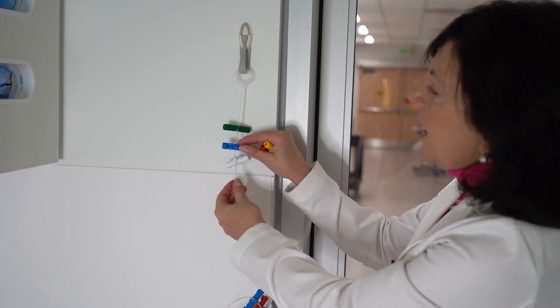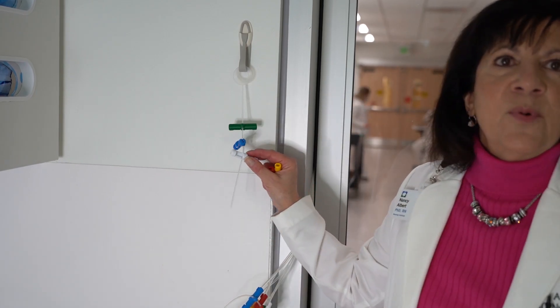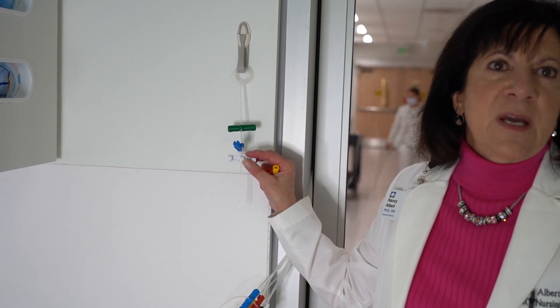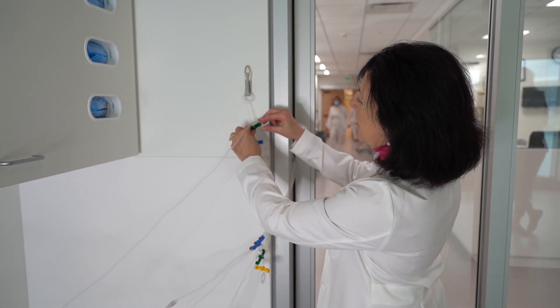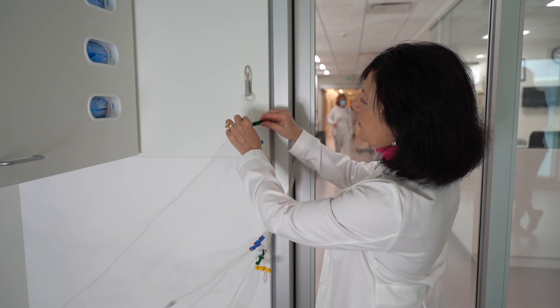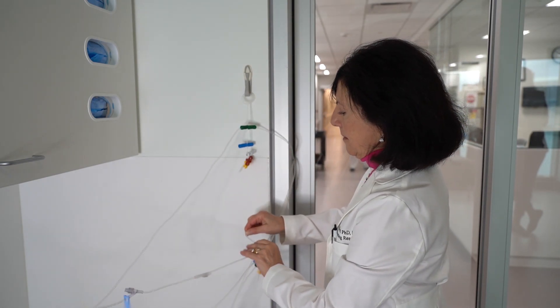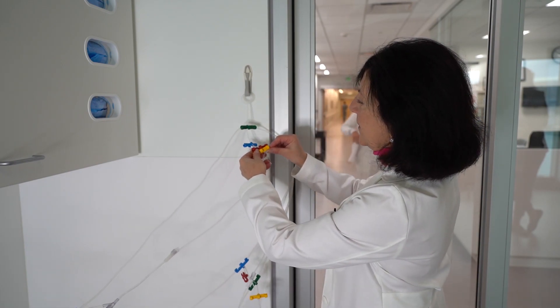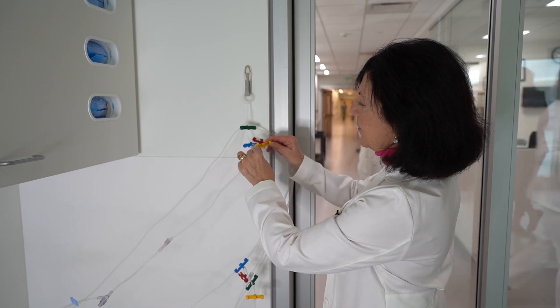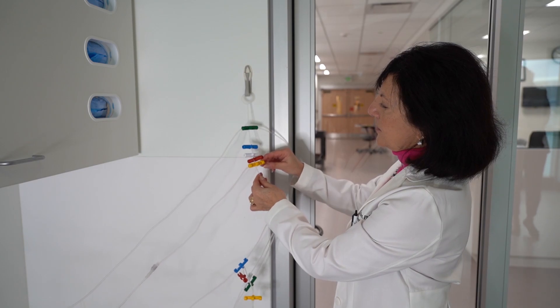I've got three up here already in under a minute and I can start putting my tubing through the cradles now. To attach the tubing to the cradle you simply start on whichever end you are comfortable with, go up, down, and up — or you may start at the bottom, go up and down. Again, there is no right or wrong direction for each of the cradles.